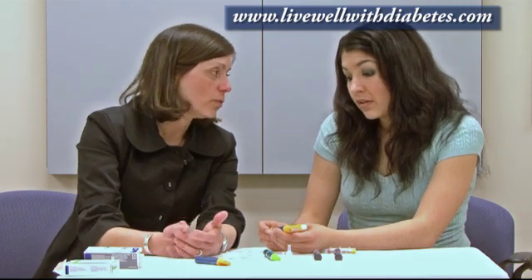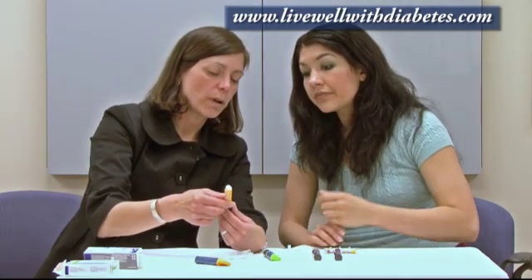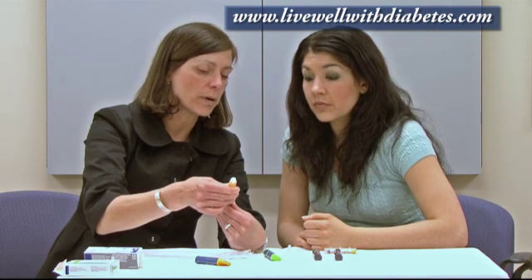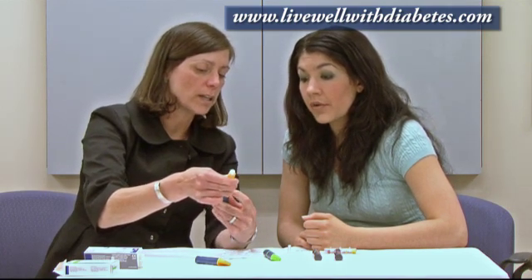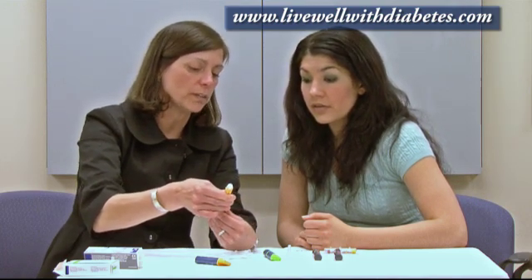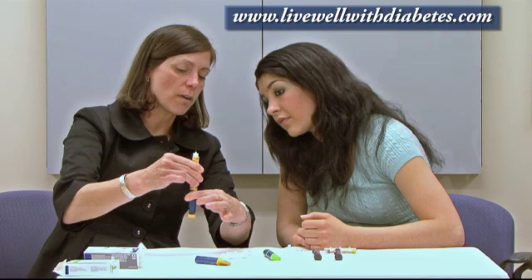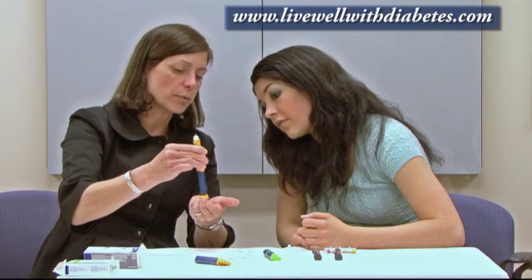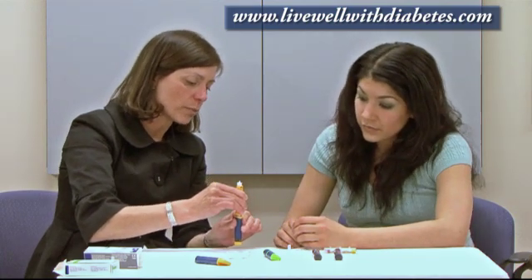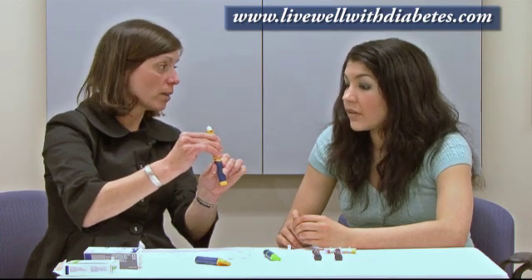To redo that dose, what you do is hold one hand on the yellow side, one hand on the blue side, and pull apart. You can see in the middle there's a silver area — there's actually a spring that holds these two pieces together. Pull the two pieces apart and at the same time push the button against the table while keeping the pieces held apart. That dial will go back to zero.